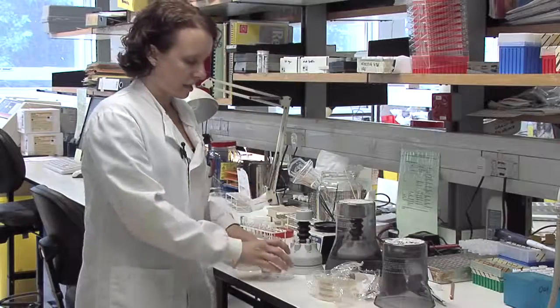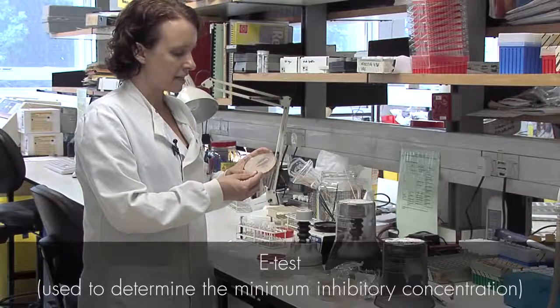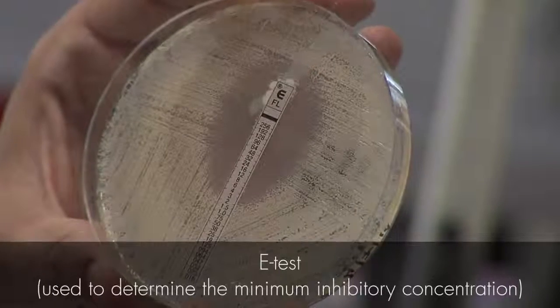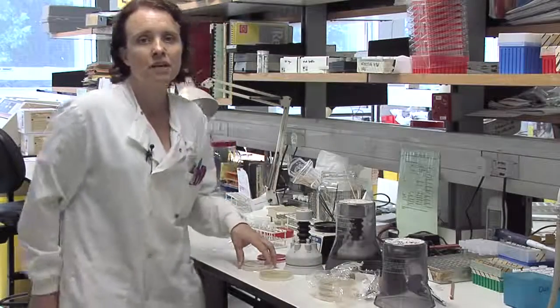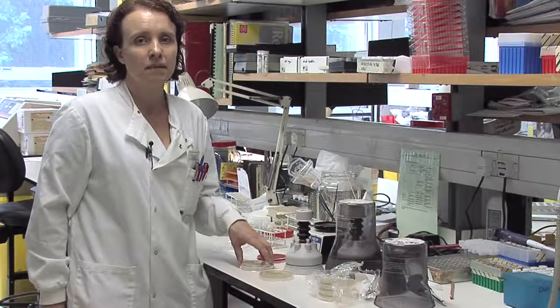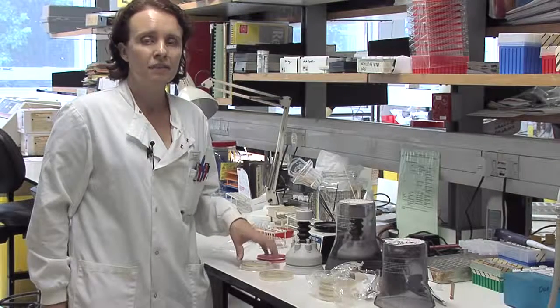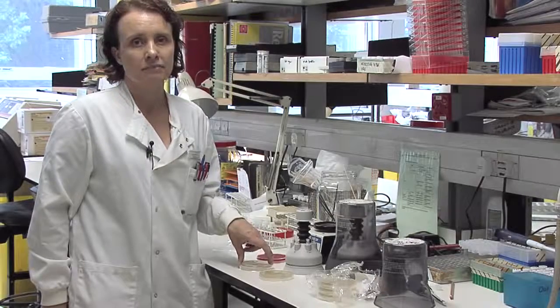This bench is our antibiotic susceptibility testing bench where we would do manual BSAC susceptibility tests using paper discs. We would also do E-tests. This test is a fluconazole E-test for Candida species. We would also, on this bench, monitor serum levels for antibiotics such as gentamicin and vancomycin to check that the level in the serum is not too toxic and that it is at the right therapeutic level.